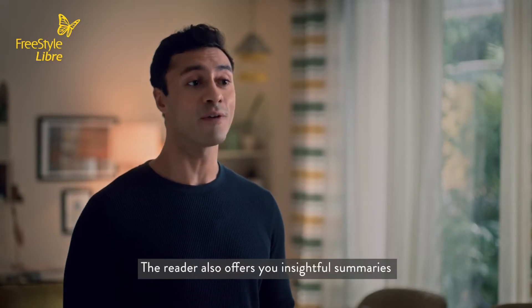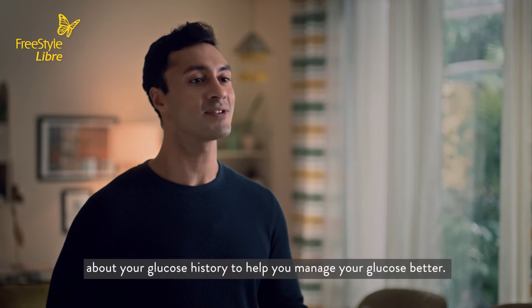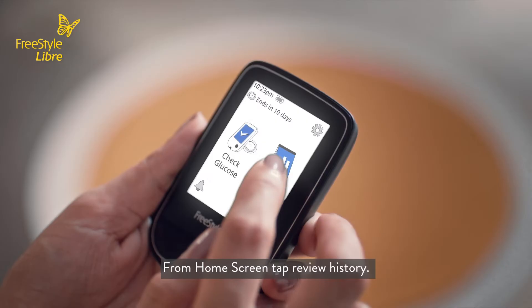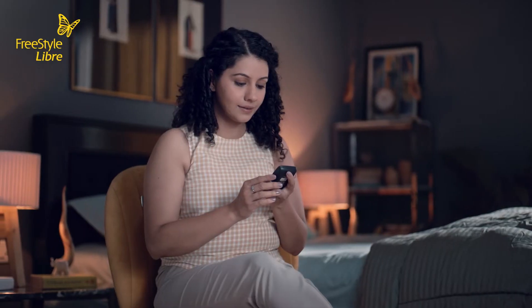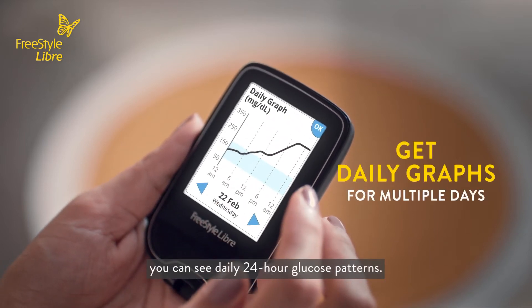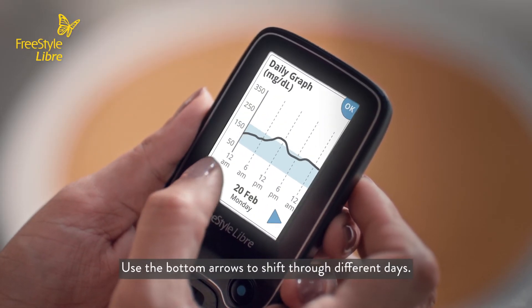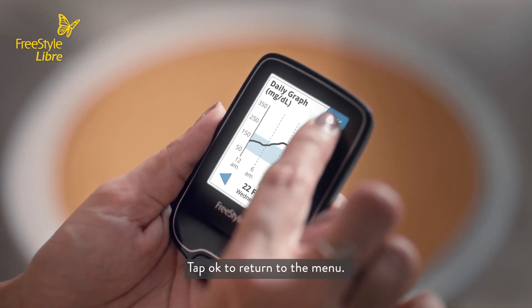The reader also offers you insightful summaries about your glucose history to help you manage your glucose better. From the home screen, tap Review History. When you tap the daily graph, you can see daily 24-hour glucose patterns. Use the bottom arrows to shift through different days. Tap OK to return to the main menu.